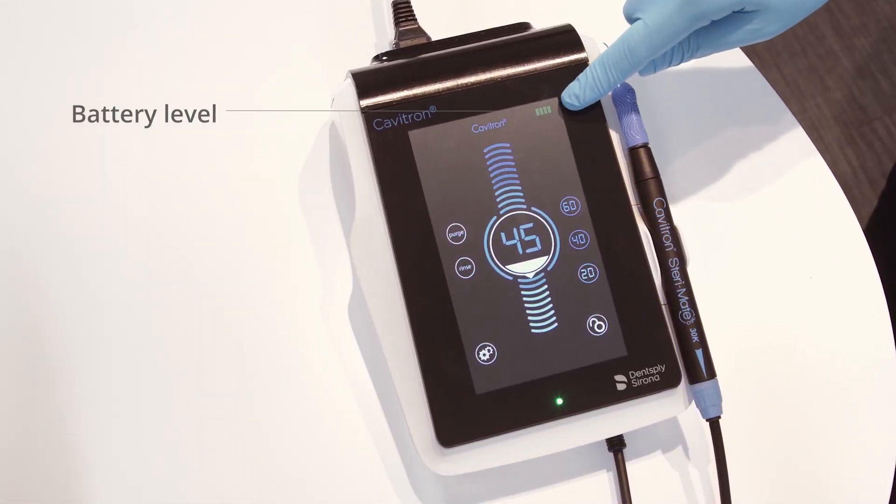The upper right corner displays the battery level of the foot pedal. All of these features are detailed in the directions for use.